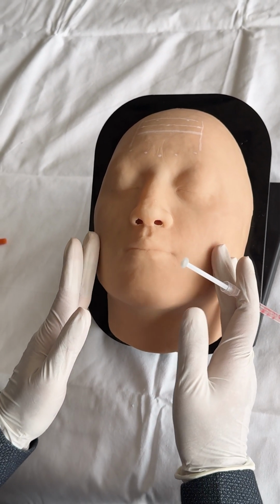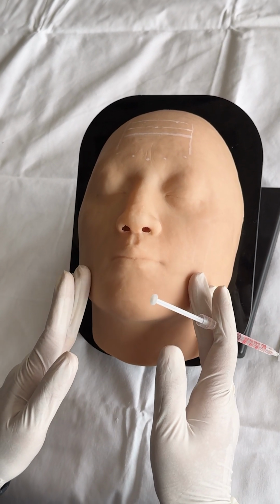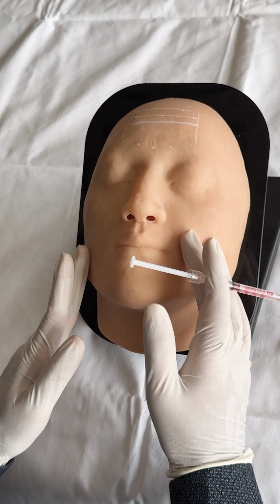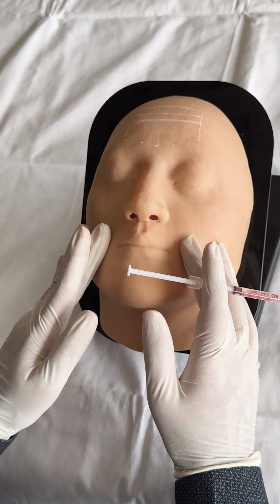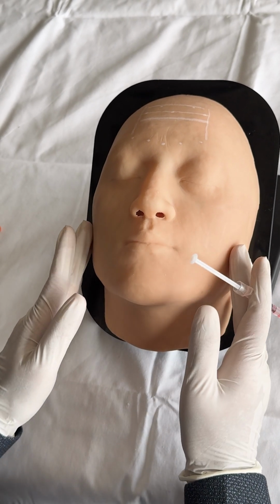One can feel the palpation of masseter at this particular area on the FaceSim module, because of the perfectly designed face. One can feel the softness of the tissue, indicating that there are fat pads, and the firmness will give an idea that you are possibly into the masseter muscles in this particular area of the face.